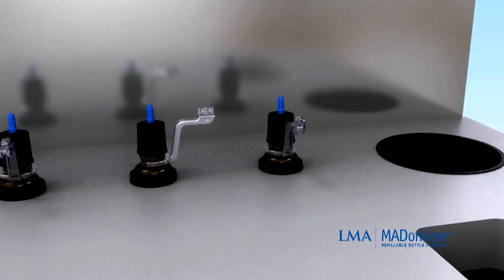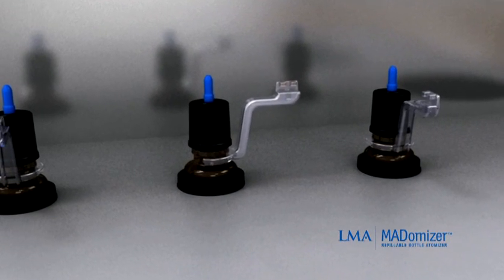The portable MADomizer fits on ENT carts or in console bags and does not require noisy compressed air.